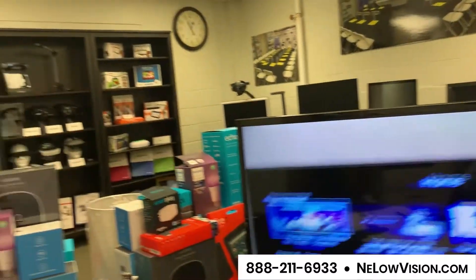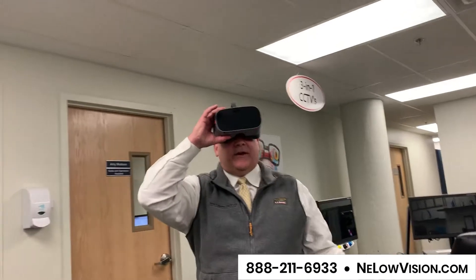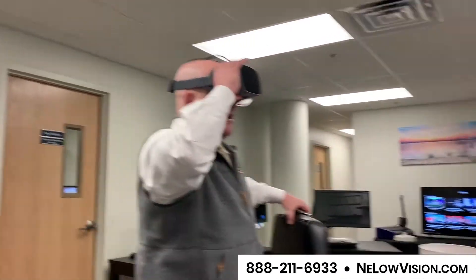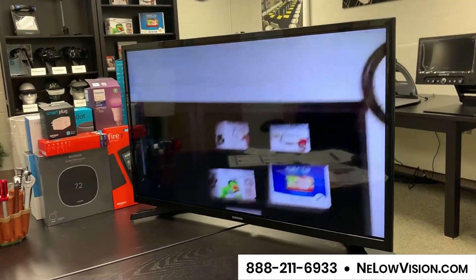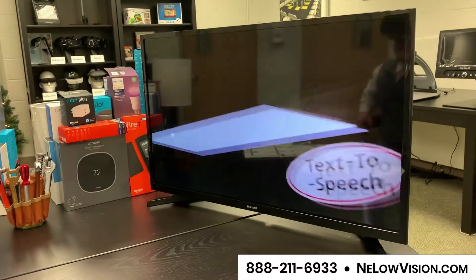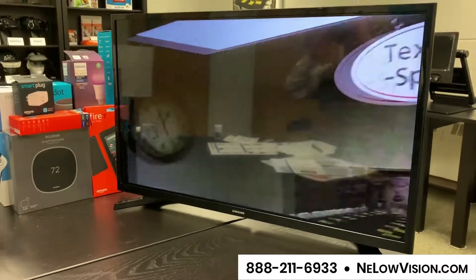So that was TV viewing. I'm going to walk over here very carefully and bring my chair over. Hopefully you can see what I'm seeing on that screen over there. This particular device is neat because I'm going to use it as a magnification device to see things out at a distance. The screen looks a little jumpy but I'm just getting settled.